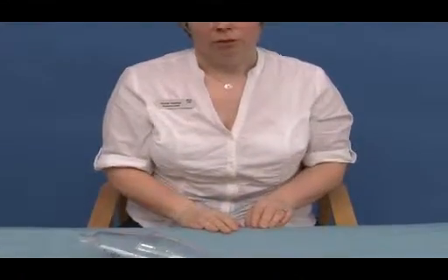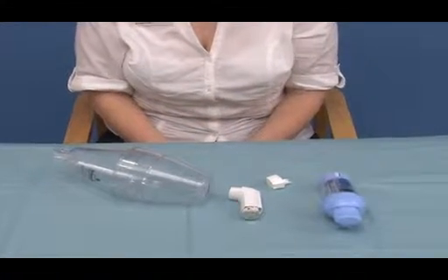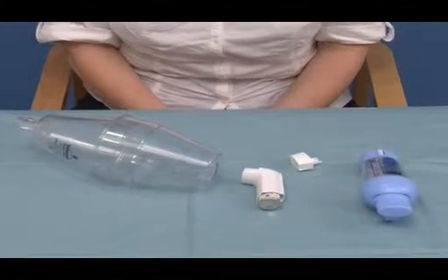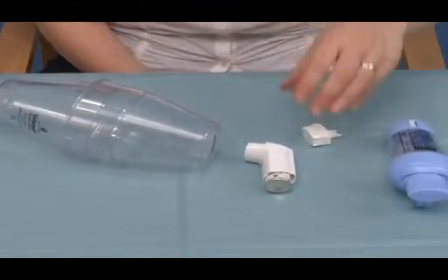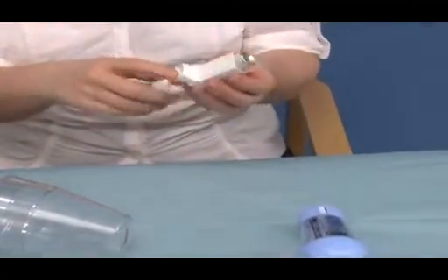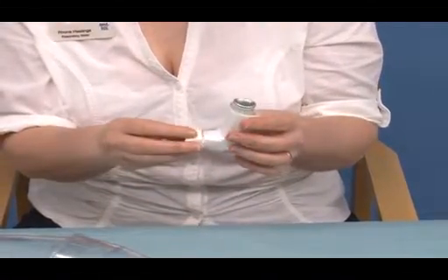Important things overall for inhalers to remind patients is to, obviously, when they get their inhalers from the chemist, check the expiry date to make sure it is in date, and obviously to check inhalers in the house if they've not used these for some considerable time, that the inhalers are still in date. It's important also, whatever type of inhaler they're using, to check that the mouthpiece is free from any foreign bodies and that the inhalers are kept clean.